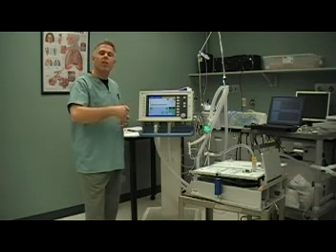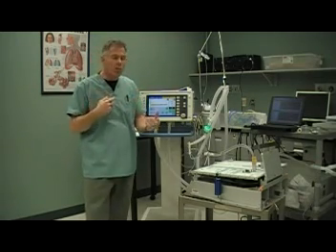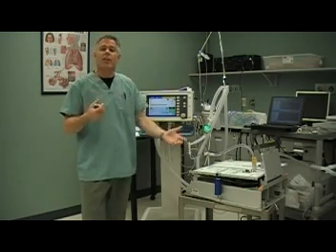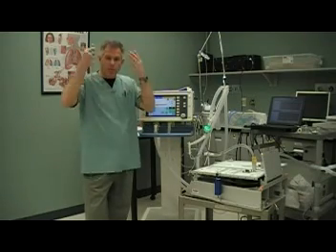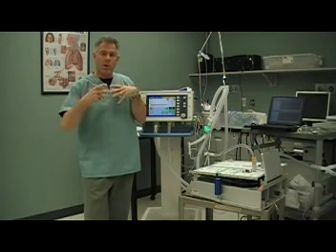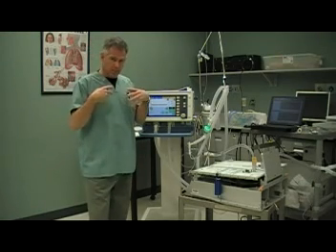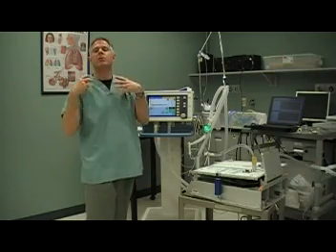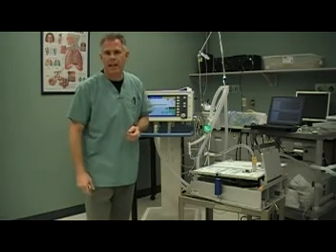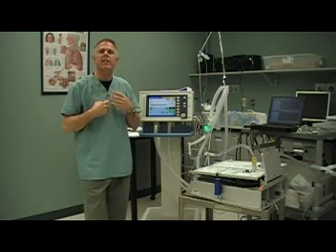This is a continuous spontaneous mode because the patient determines the respiratory rate, the TI, the TE, and the tidal volumes. All elements of the patient's minute ventilation are controlled by the patient. For this mode to be effective, the patient must be awake and responding appropriately to changes in their arterial blood gas values — if they sense a rise in their CO2, they'll increase their minute ventilation to blow that off. Their brain stem and neurological function, respiratory muscles, and basic respiratory drive must be intact. But what can be limited is their muscle strength. This mode can augment even the smallest inspiratory effort so that the patient can achieve an effective alveolar minute ventilation.